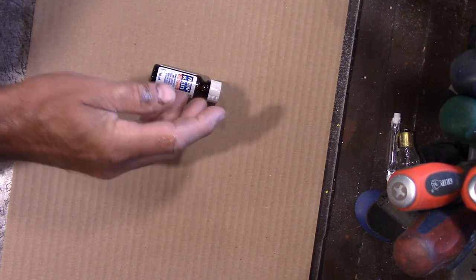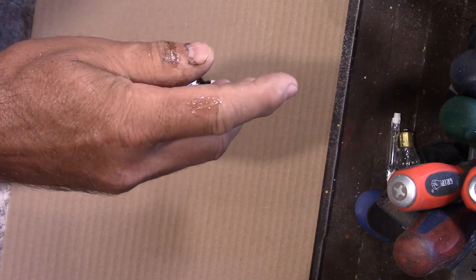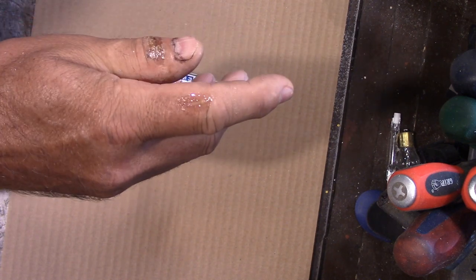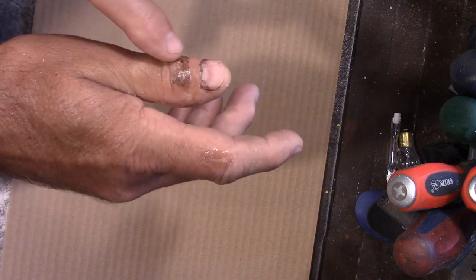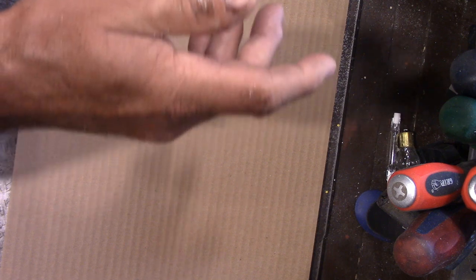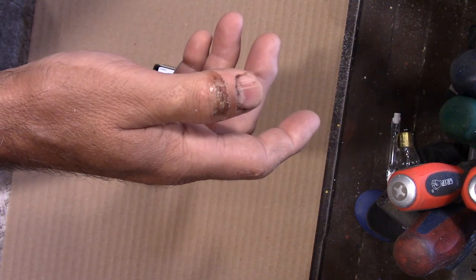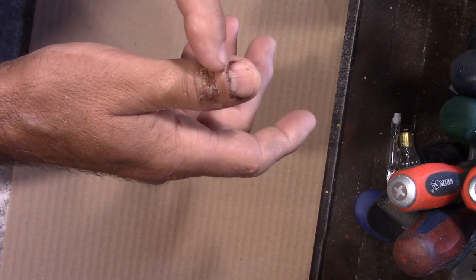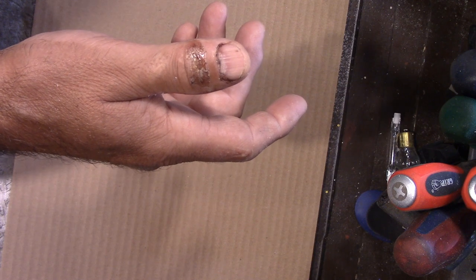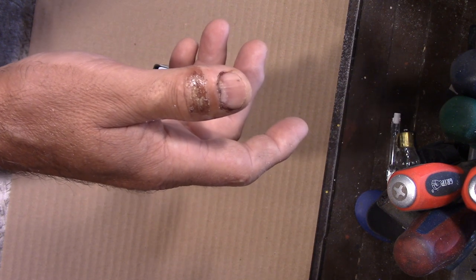You can see how it dries up pretty quick. And you can see on this one here how it's formed like a glaze. What's so nice about this stuff is you can see that I still have the flexibility, but it's holding the cut from one side to the other from opening up — which is the ideal thing. Plus it's stopping contamination from going in there.